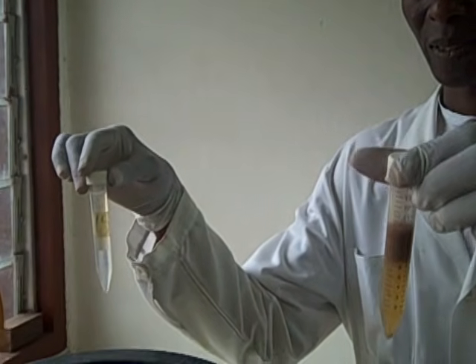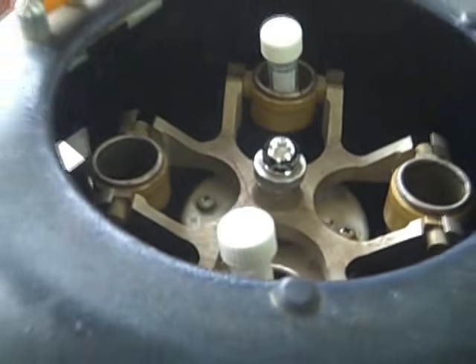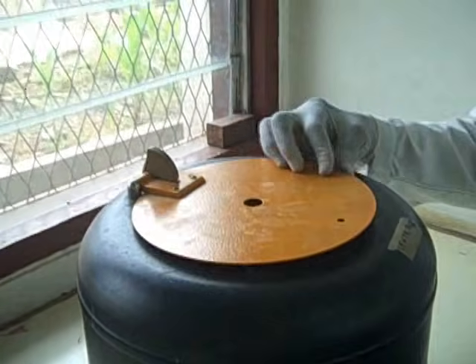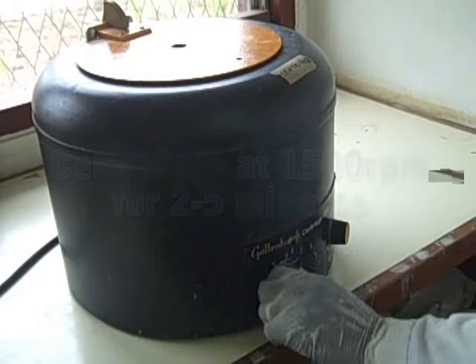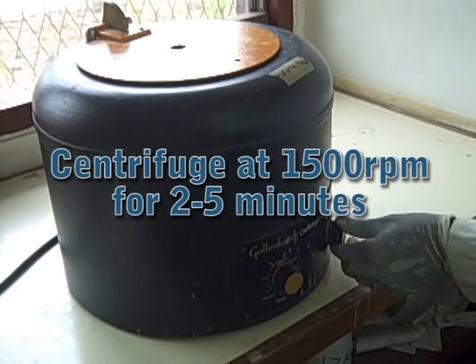So put it in the centrifuge, balancing it. Centrifuge at 1500 RPM for 2 to 5 minutes.